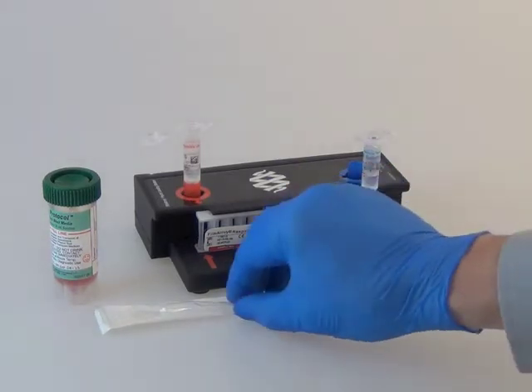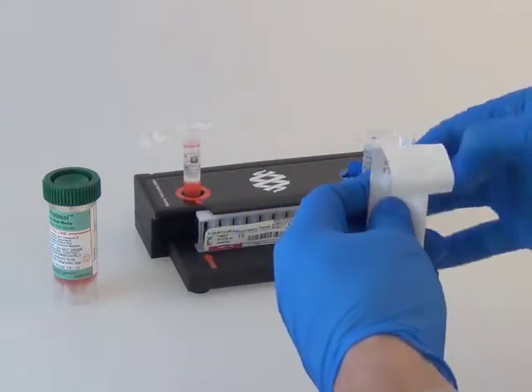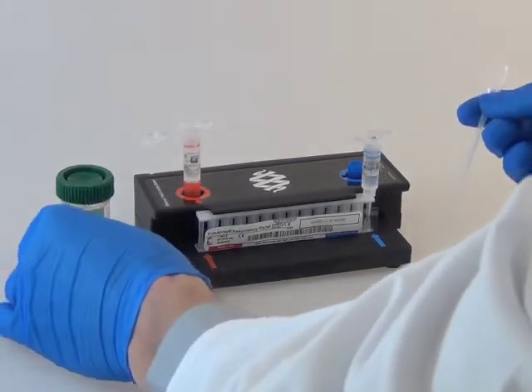Open the transfer pipette included with the pouch, and open the stool specimen in the transport media.